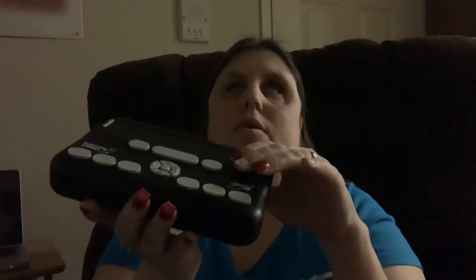These keys on the top are for typing — if you're in a file, you can find words or type in it. If you're in an edit field on an iPhone, like a Facebook, search, or YouTube field, you can use these Braille keys to type in Braille. If you type on Facebook or Twitter, when you hit send it'll be regular text, but you can type in Braille.